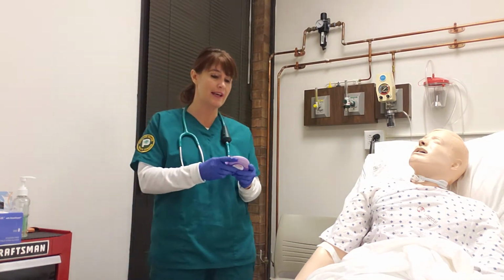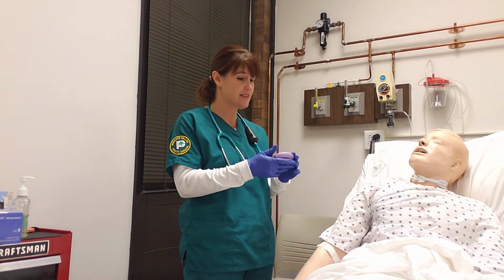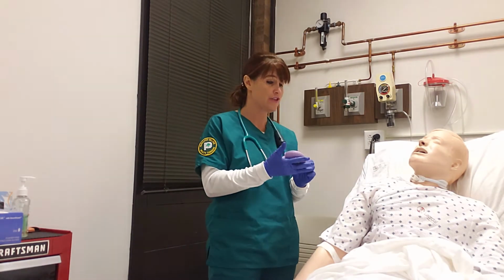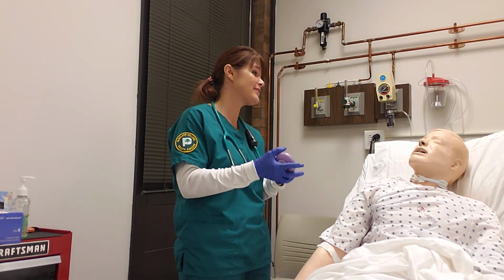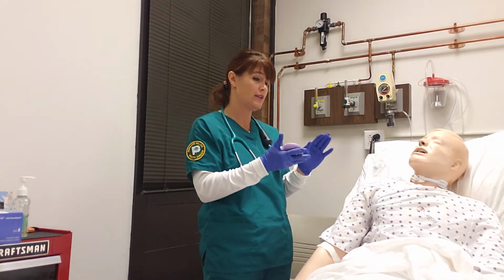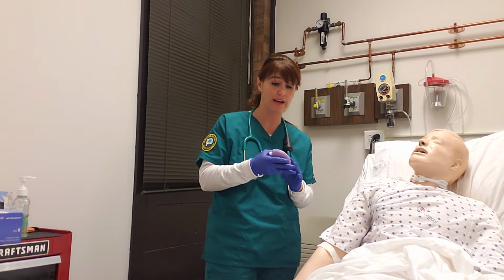All right, so today the doctor's prescribed you this dry powder inhaler. It's Advair. This is not a fast-acting inhaler. If you're having an asthma attack or trouble breathing, this is not the one to use, okay? Very important. I want you to be safe. This is a maintenance drug, so you do not use it for that.